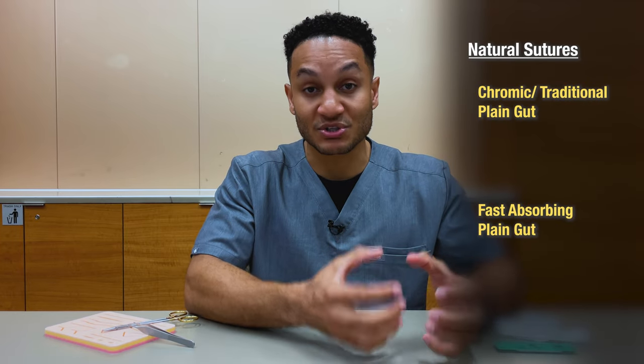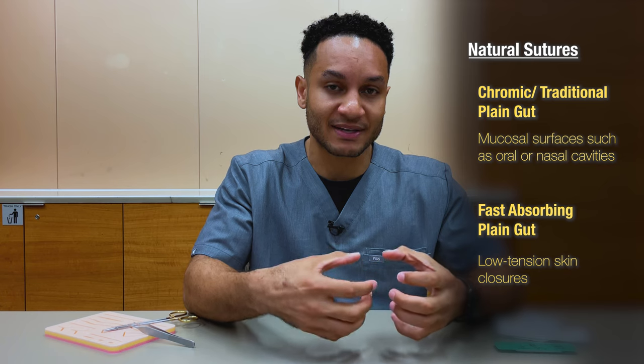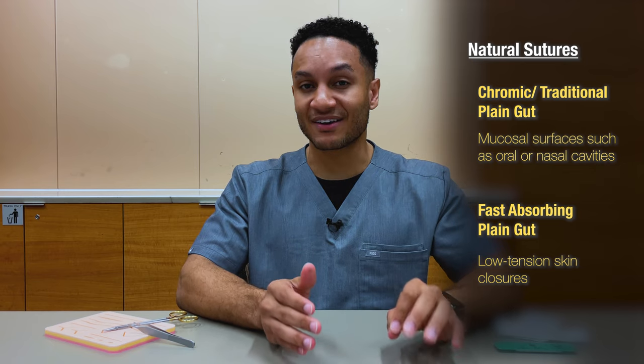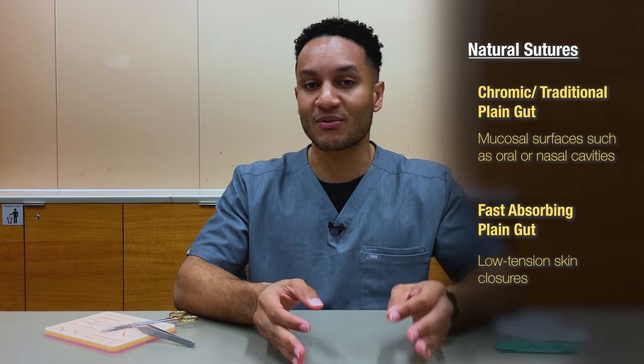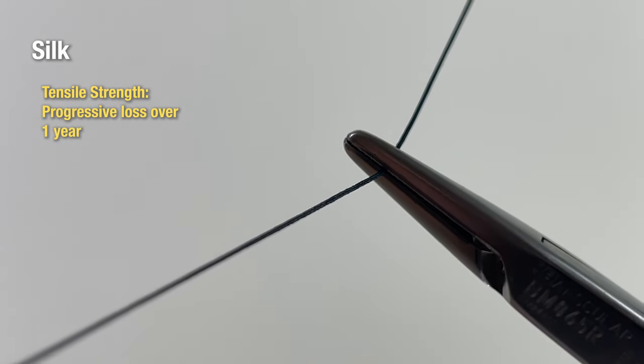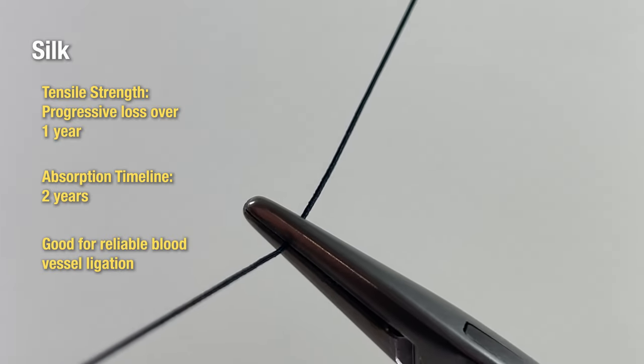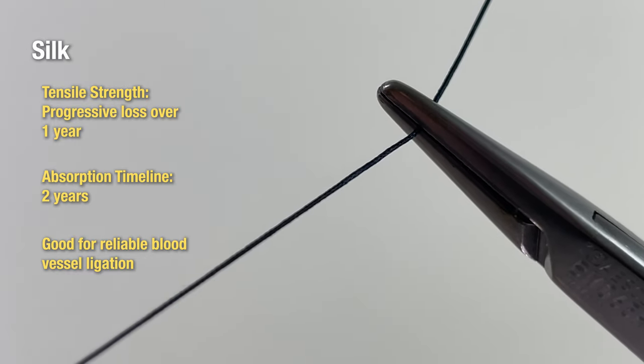To differentiate between the natural gut materials: use plain or chromic gut sutures internally — such as in the oral mucosa or a body cavity — and use fast gut sutures externally on the surface of the skin. Of note, cat gut is not from a cat; it's actually derived from bovine intestine, so 'cat' stands for cattle. Natural sutures are most often absorbable, however there are non-absorbable natural sutures such as silk and cotton. Silk is the most common natural non-absorbable suture — technically it does absorb within two years. You'll often see the primary surgeon leaving silk ties in the operating room to tie off blood vessels for a permanent closure.